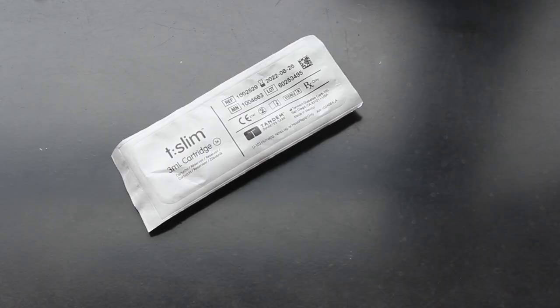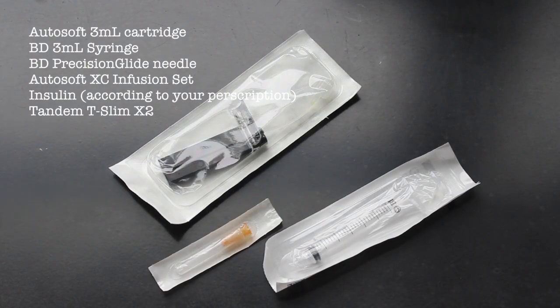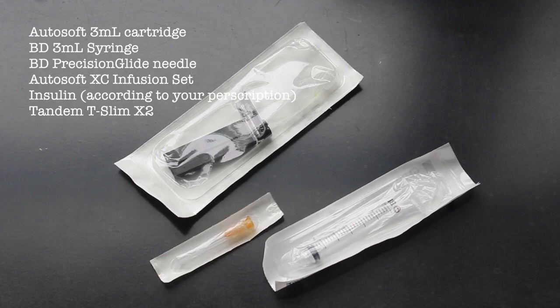Okay, so the first thing I'm going to do here is clean my area so that it's nice and tidy and sterile for those medical supplies. I'll use a Clorox wipe to wipe down my desk, and then I can start gathering my materials. I'll put a list on the screen so you can see exactly what you need.